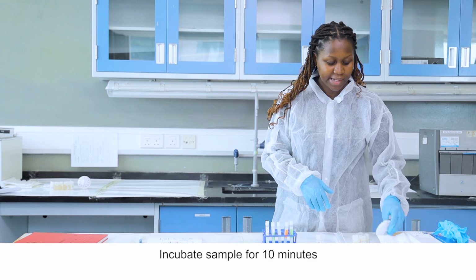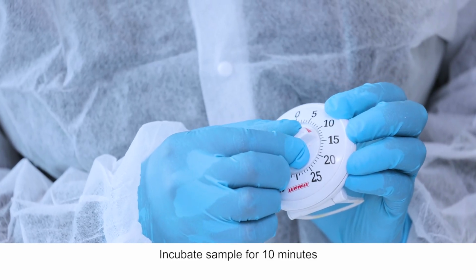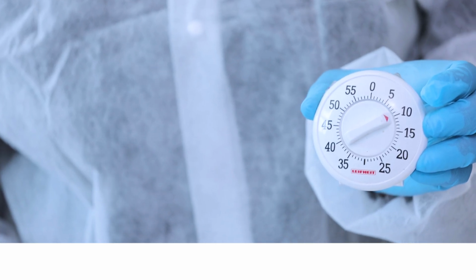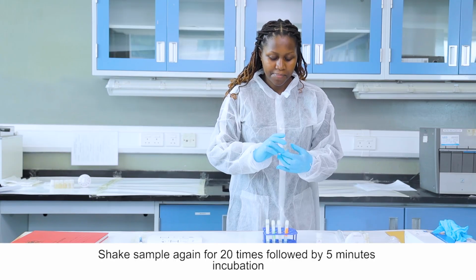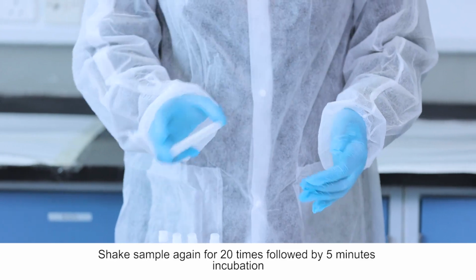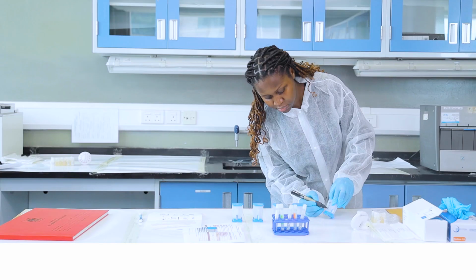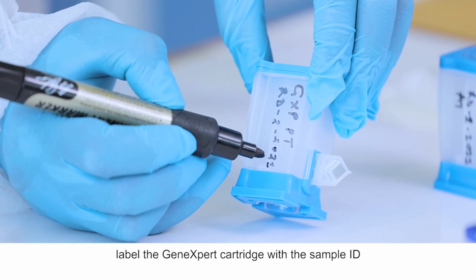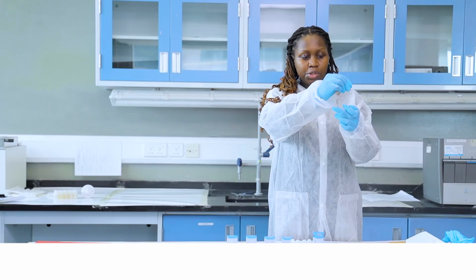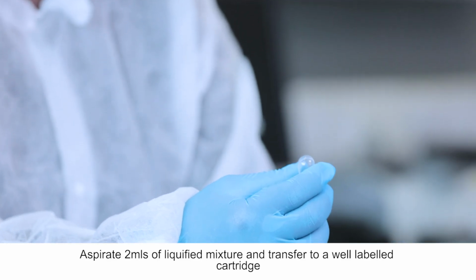Incubate the sample for 10 minutes. After 10 minutes, shake the sample again 20 times, followed by 5 minutes incubation. Label the Xpert cartridge with the sample ID. Aspirate 2 ml of the liquefied mixture, and transfer to a well-labeled cartridge.